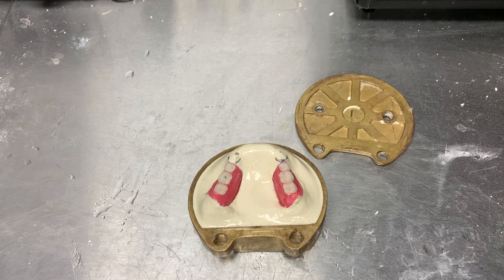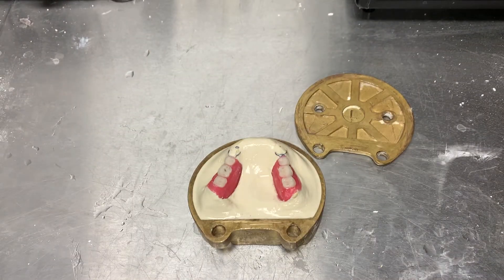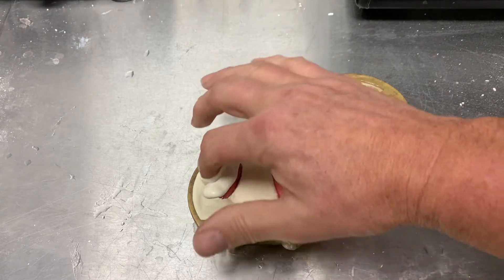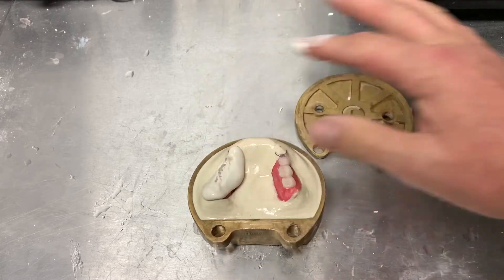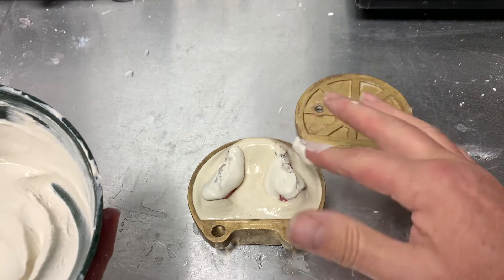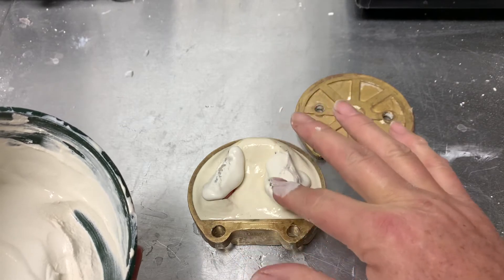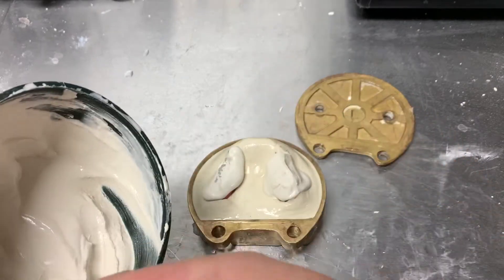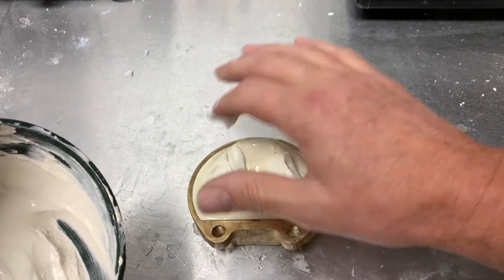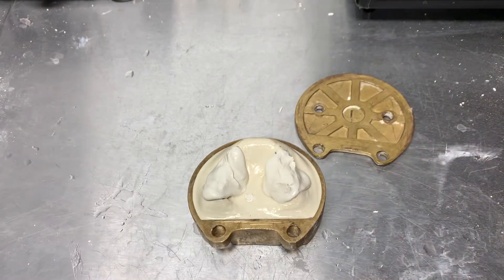Make sure you have no stone over the ledge. I've mixed up a 50-50 mix of plaster and stone, and I'm going to use my fingers here to ensure coverage. There are many ways to do this — you could use silicones or putties — but we're just going to use all stone here, keeping it basic.